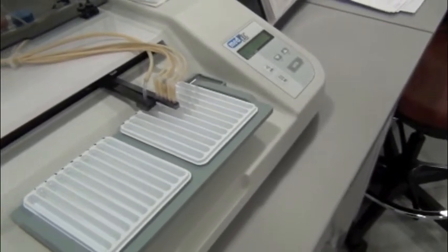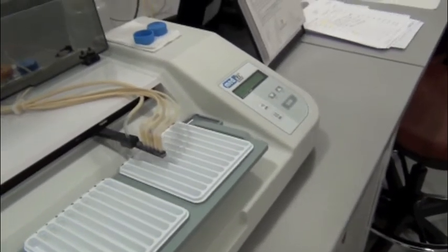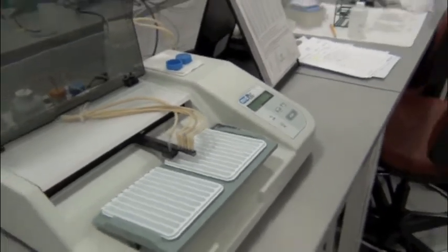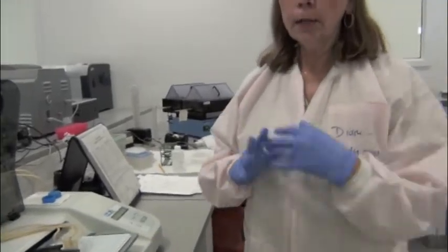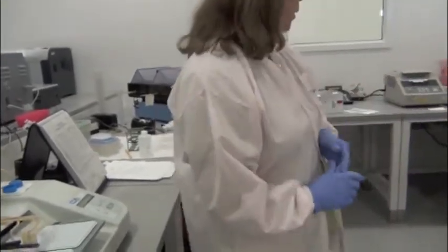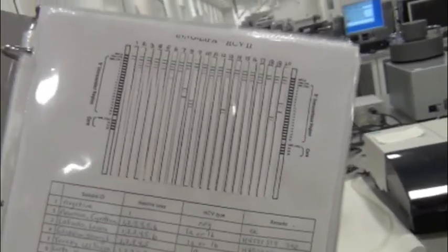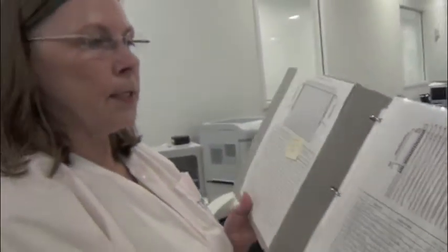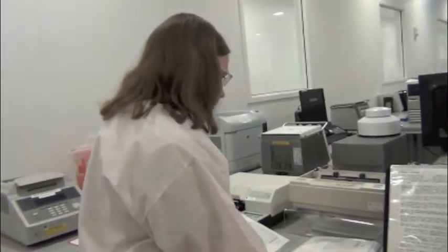So it's adding all these reagents, and then at the end it'll be dry and they'll just be lines? That's right. This is a probe technology. It's a line probe assay. It's got the probes on the strips. They're not electrophoresis. They're actually placed on the strips. So when you look at the finished products, they're nice clean lines. They don't look anything like Western blots that have been electrophoresed. These are manufactured and positioned in that spot right on these strips.